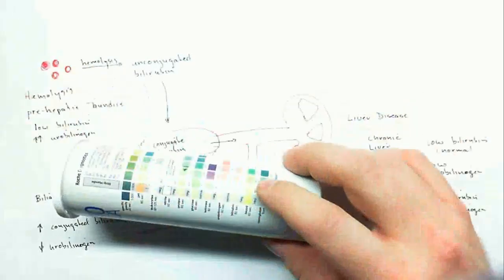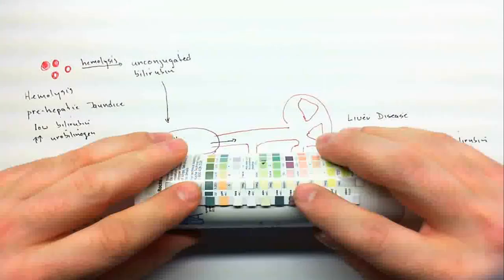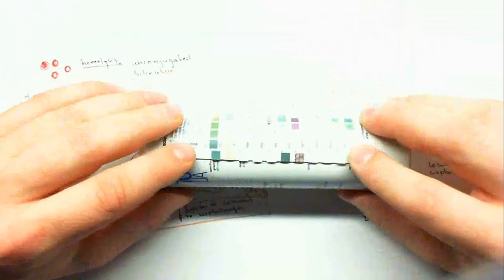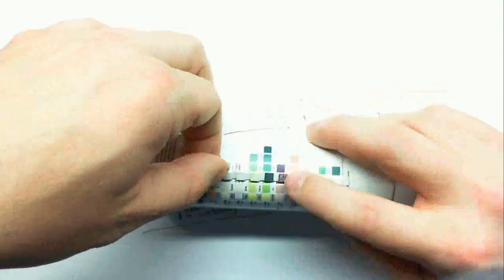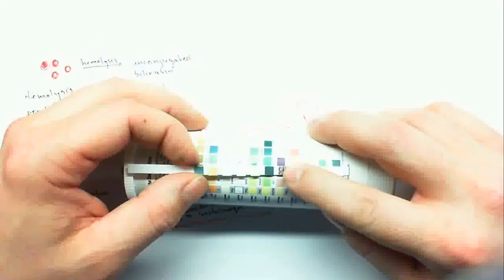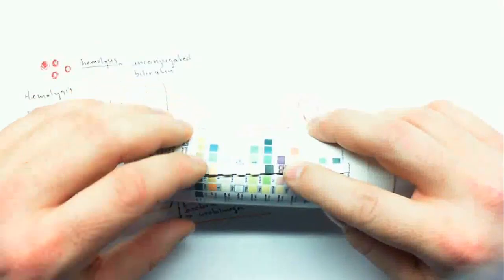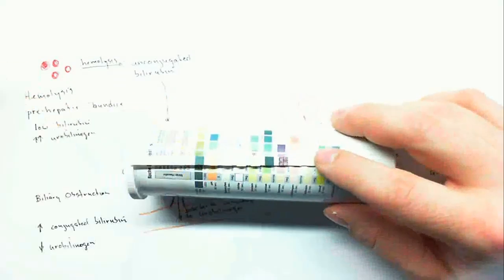Let's try and go through a couple of these. Admittedly I've kind of doctored these, so they might not be real clear. But this first one has a very low specific gravity. It also has glucose present. If we line that up, it has glucose present and it also has ketones present. So if there's glucose, ketones, and a low specific gravity, this is a pretty good indication of diabetes mellitus.